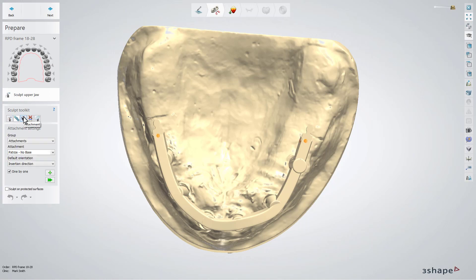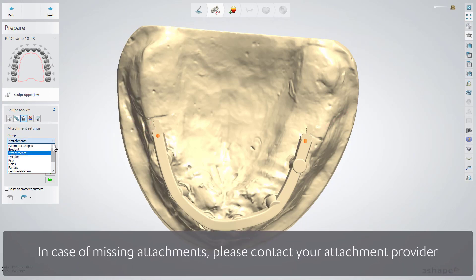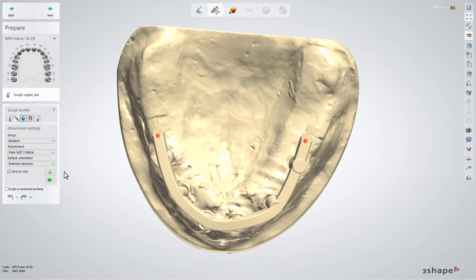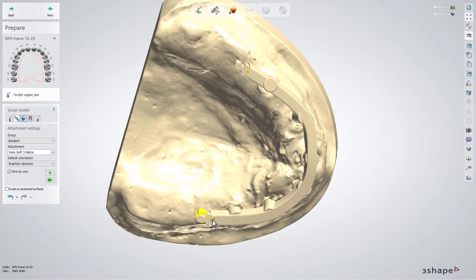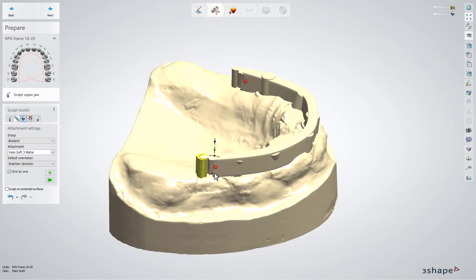With this version of Dental System, if you go to the Attachment menu, you'll see that the software automatically detects the attachments. There are red dots visible on both sides of the bar. Now find the same attachment type in the Library menu. This will allow us to attach both parts — the male and the female — very precisely. While placing the attachment, you can modify the position for the matching component and place it as precisely as you can with the help of the control points.